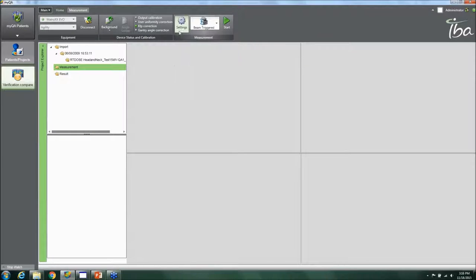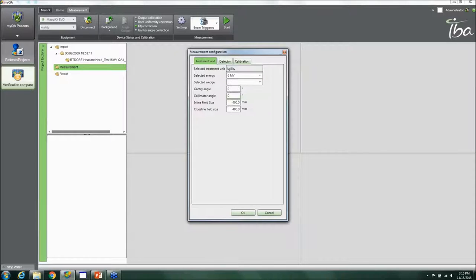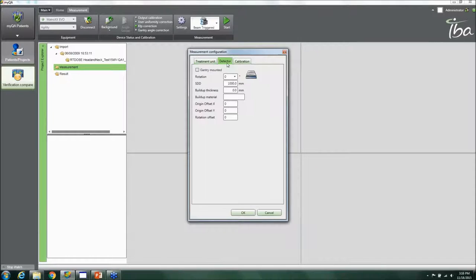Once those are set up, you go to Settings and specify which LINAC you're on, select your energy based on what you've set up on your LINAC, choose no wedge or a wedge, set the gantry angle for each field, field size, and detector orientation — for example, if the detector is rotated 90 degrees and on its side.